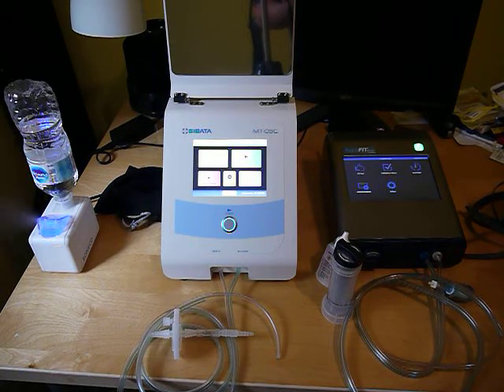During the test, the person being tested should not talk — they should only talk during the talking part of the test. It's a good idea to only bring maybe one or two people into the room while testing so they don't joke around or have a conversation, because that can cause them to fail. I think that covers the main things that cause issues — hopefully this helps.